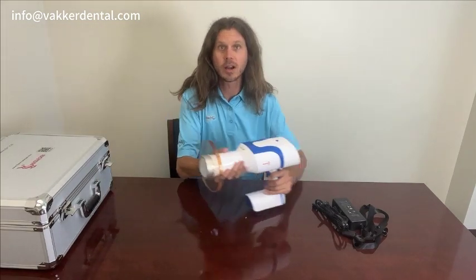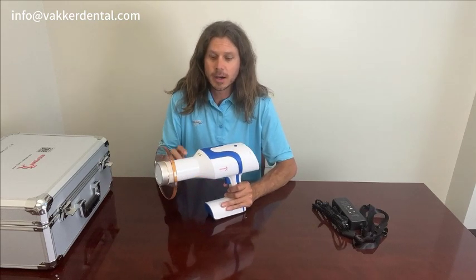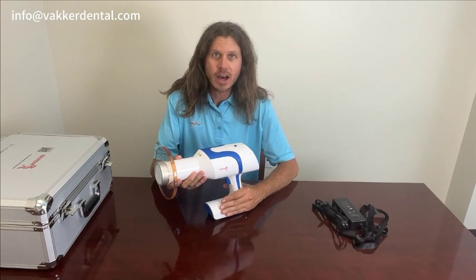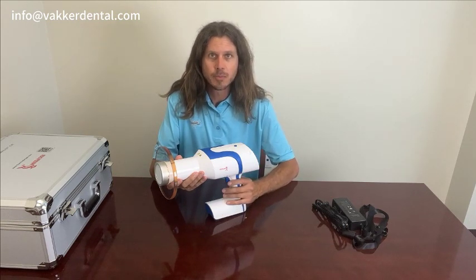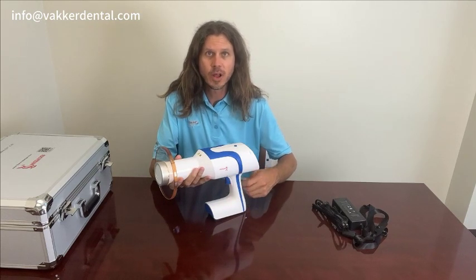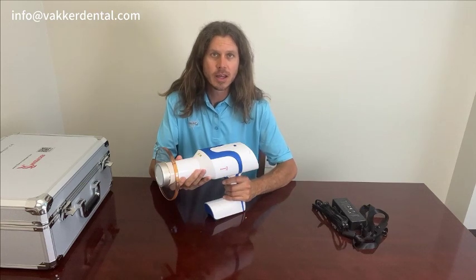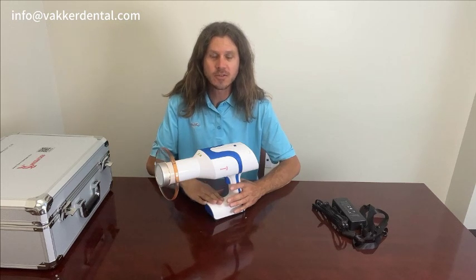Let's go ahead and talk about a couple of the features. One of the main things is it has a two-year warranty. My favorite thing about it is the battery — it does allow 1,500 exposures on a full charge. It also comes with a rapid charge feature: if the battery is dead, you plug it in for five minutes and you can get 115 exposures. If you need a full charge, it's about an hour to an hour and a half. The battery is really one of the nice features about this.